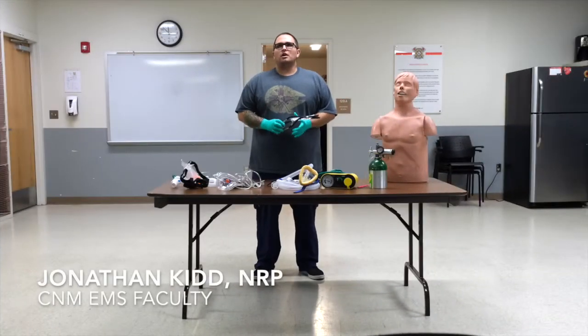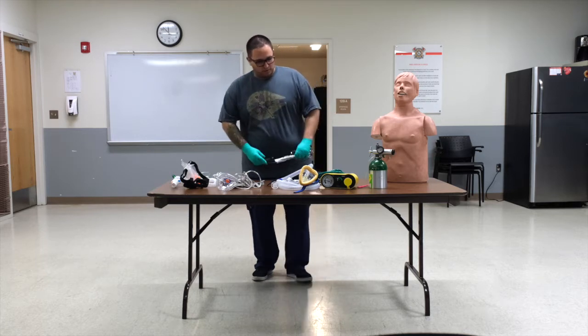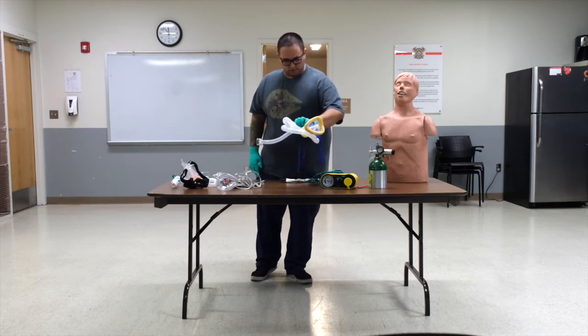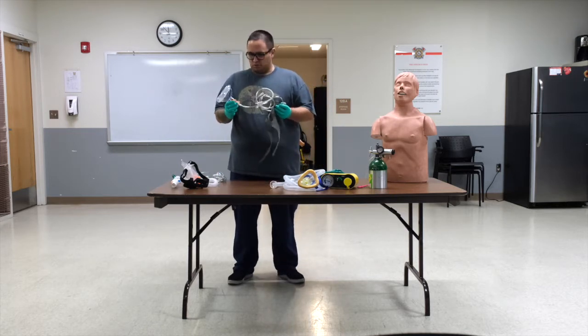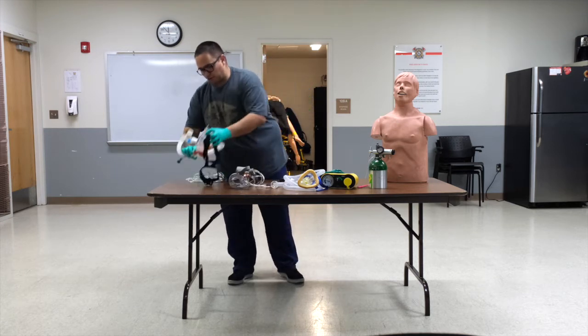All right, guys, next up in oxygen delivery is going to be our CPAP. Currently, right now, there are about three different devices that we use for CPAP for pre-hospital. We have the partially disposable CPAP-O2 machine itself with the circuit. This is the part that is disposable. We have the O2, which the whole thing is disposable. And then we also have the Pulmodyne, also completely disposable.